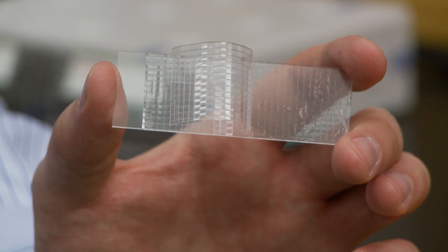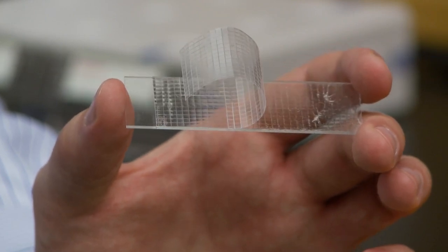Now, bioengineers have developed a new bandage tape that's pain-free. We were very interested to develop a new type of tape that could secure devices to fragile skin but be very easy to remove.